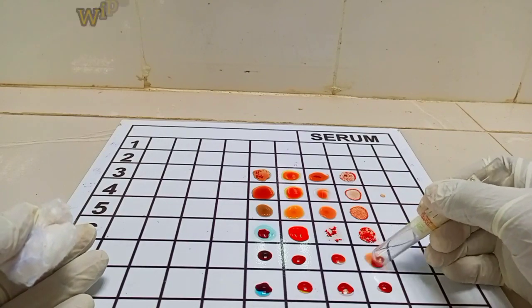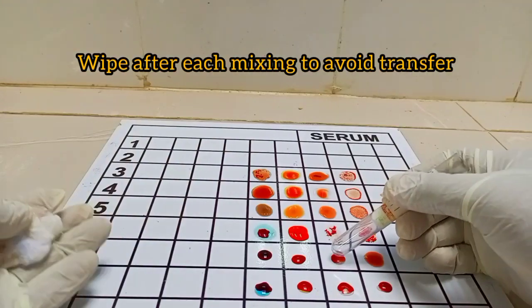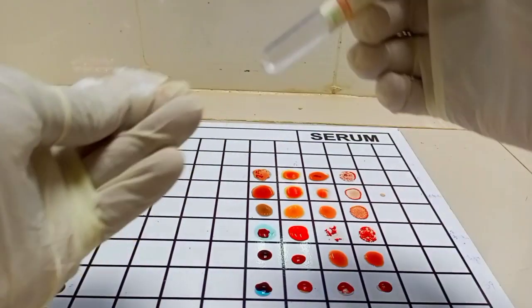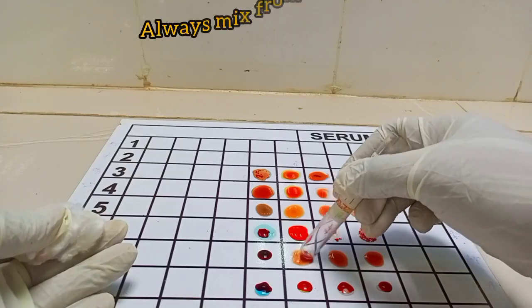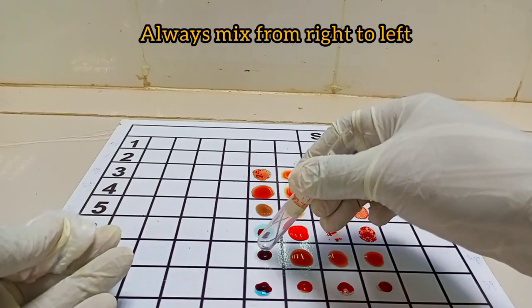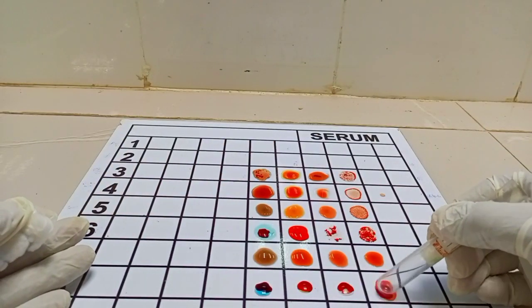I will just mix. I'll mix the Antisera and my cell together. This is to allow for proper reaction.